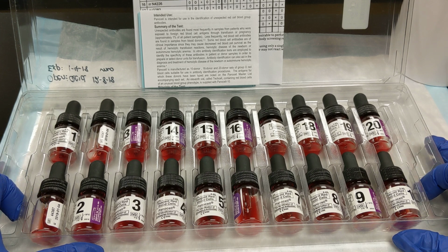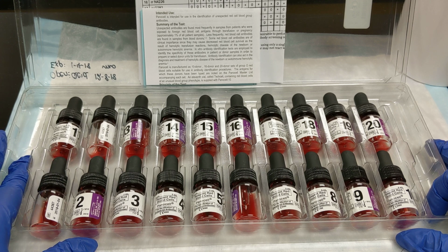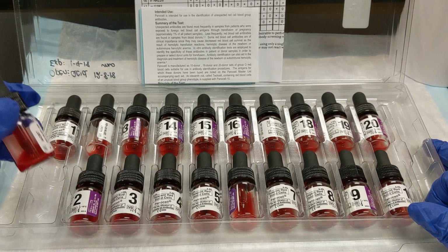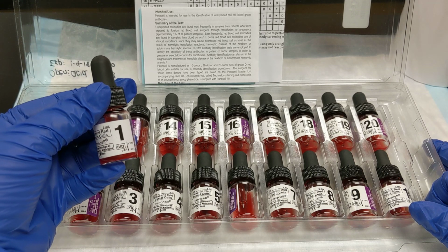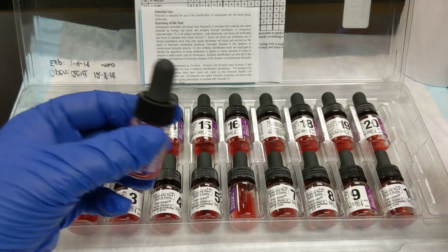This box of reagents represents 20 different donors. So just think about that the next time that you are doing some testing, the amount of sacrifice, I guess, that folks need to do to be able to provide us with what we need to do our testing. And this is part of the reason why blood banks are so precious and so expensive, because each one of these represents a person. So this cell number 1 is from one person.